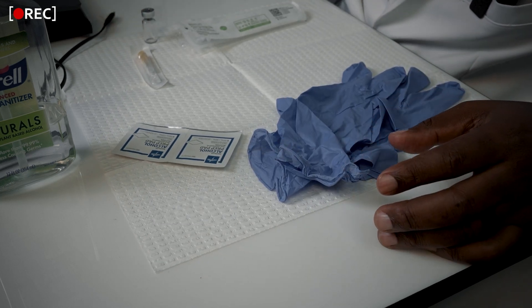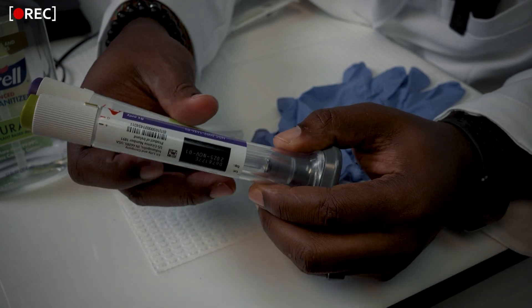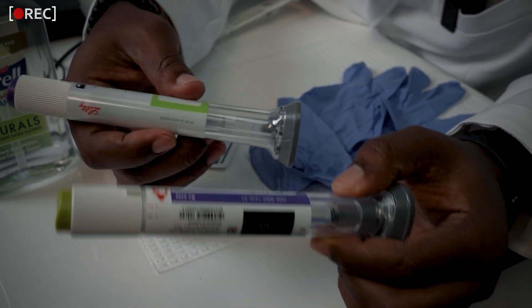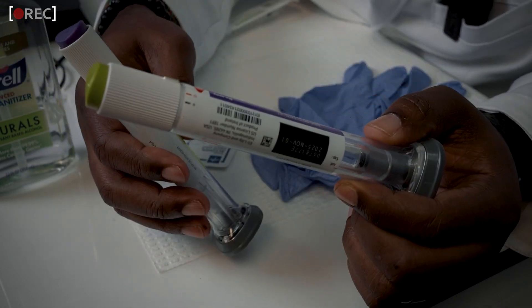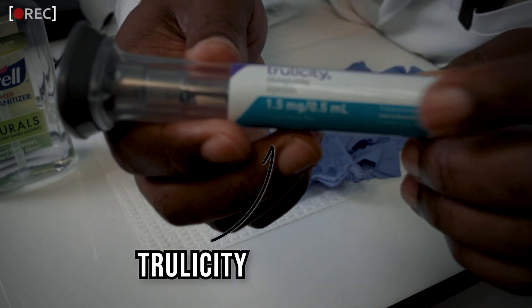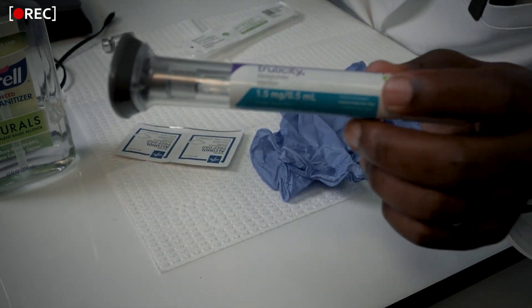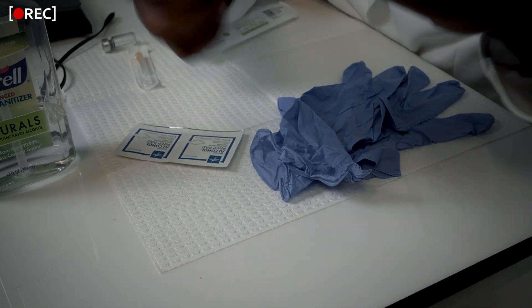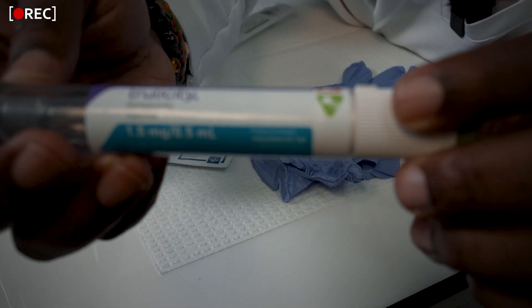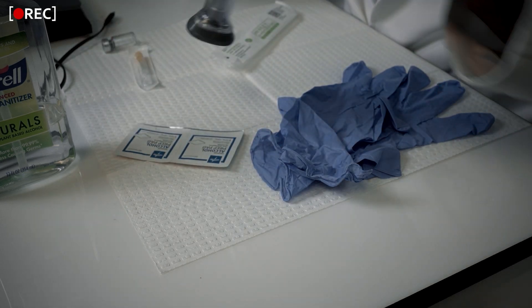For the actual demonstration, I'm using a Trulicity pen — it's the same concept. Trulicity contains dulaglutide, a GLP-1 cousin to semaglutide and tirzepatide. It has the same lock/unlock feature and gray cap. Part of the GLP-1 shortage, allegedly, was the auto-injector pens themselves not being as available as they should have been.